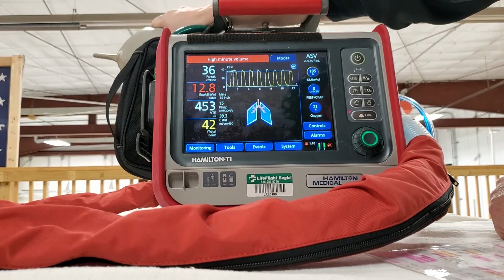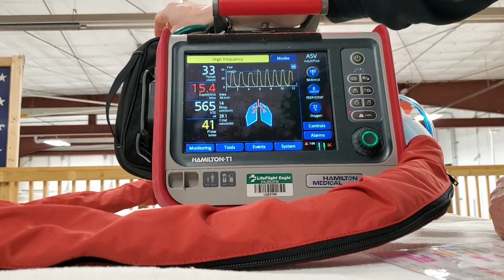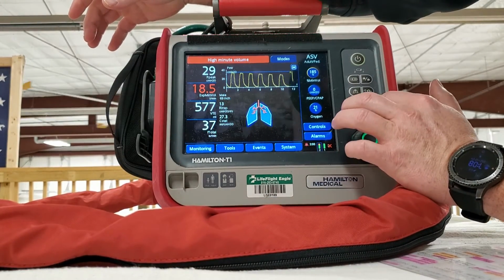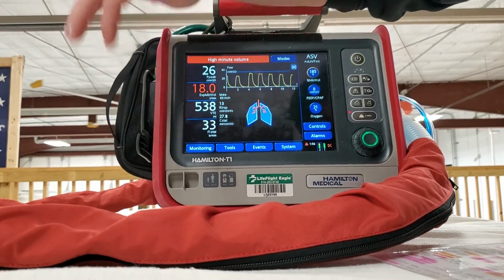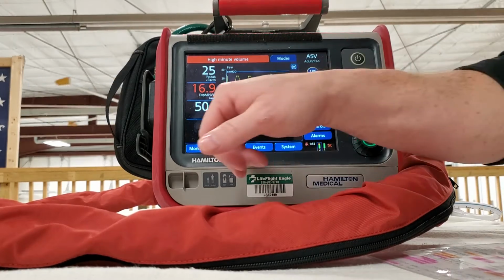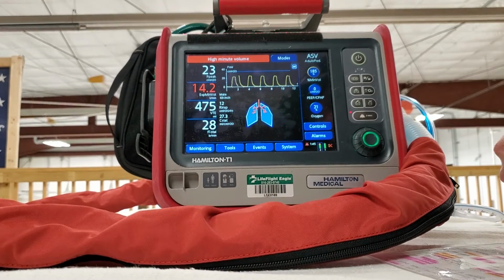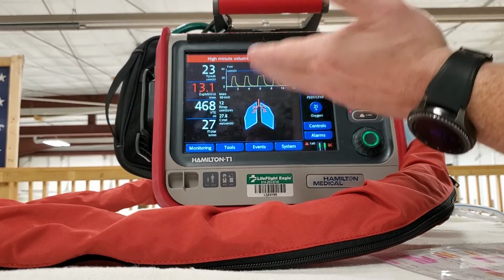So you give a breathing treatment. Now everything's going back to normal. So I did that just to show you the vent is doing all these calculations on its own. And it knows how much minute volume it wants to give, and so it's going to adjust accordingly. As you can see, it's going back down. It was up into the 40s, somebody who's stiff, needs a breathing treatment. And then you give them the breathing treatment, they open back up, and the vent automatically adjusts.